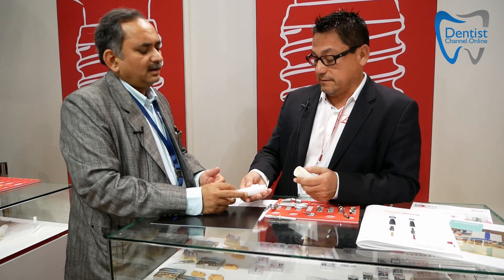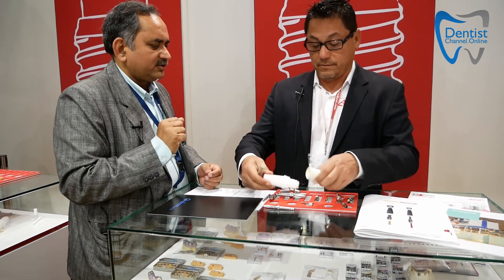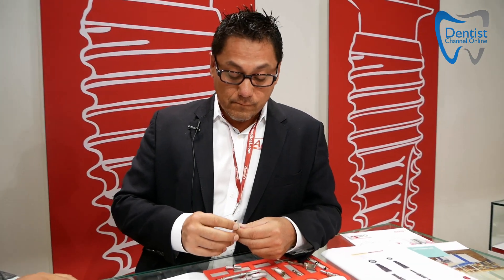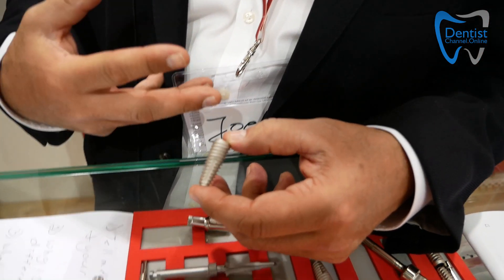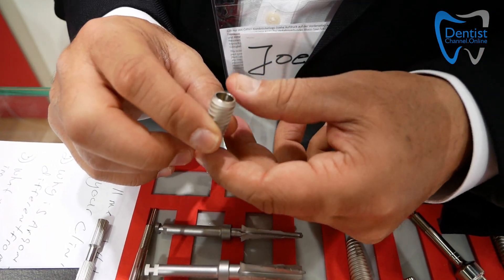How's the aesthetic market in India? It's very good, excellent, growing every time. I have another question — how do you explain the peri-protect property of your implants? Very good question — you're thinking. Now we're talking about the overall entity of the implant. So let's go back to our oversized model here. Now let's talk about all the features of the implant. It has a deep internal connection — we've already talked about that.